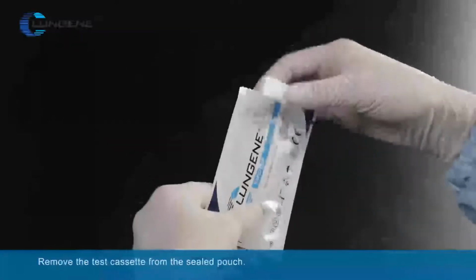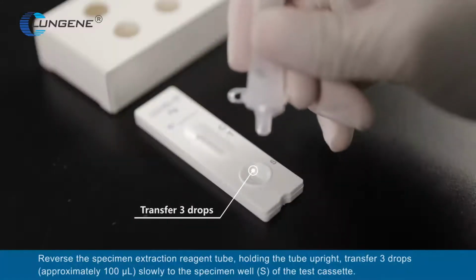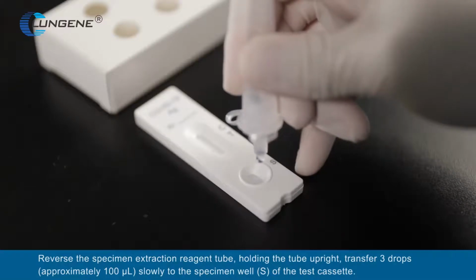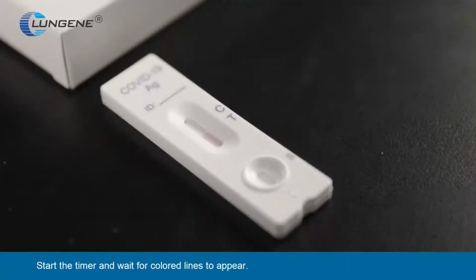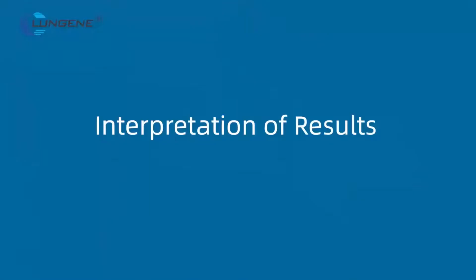Remove the test cassette from the seal pouch. Reverse the specimen extraction reagent tube. Holding the tube upright, transfer 3 drops slowly to the specimen well of the test cassette. Start the timer and wait for colored lines to appear. Interpret the test results at 15 minutes. Do not read results after 20 minutes.